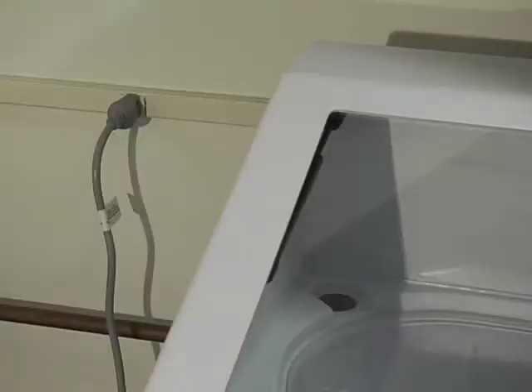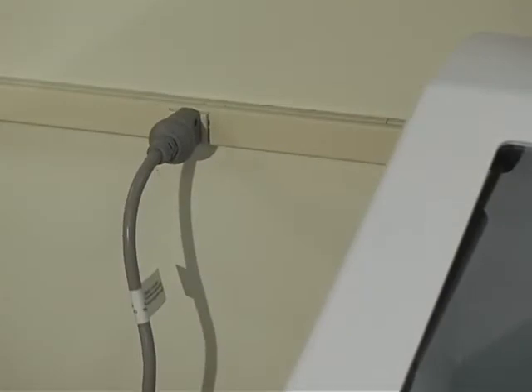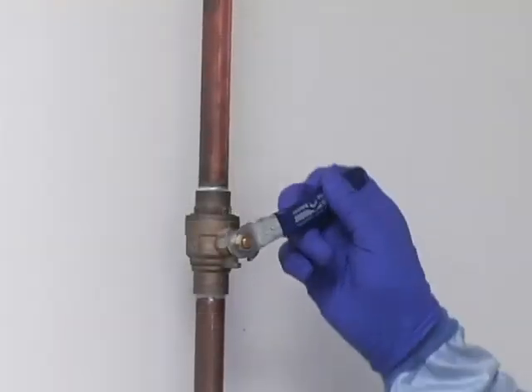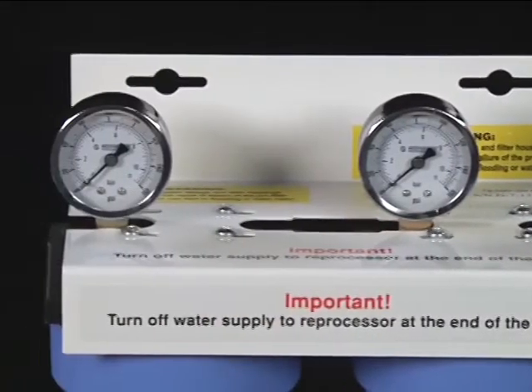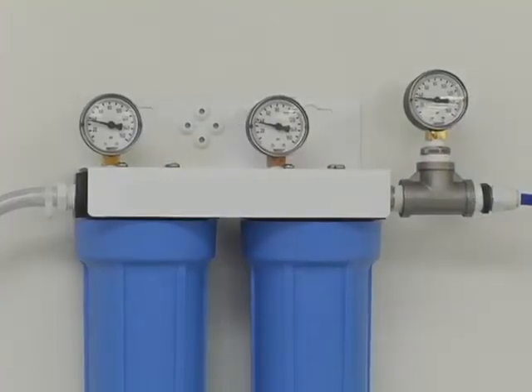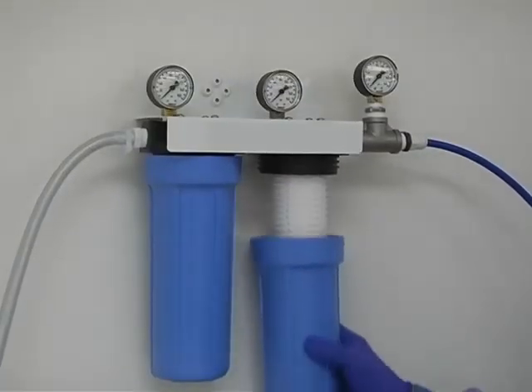At the start of the day, check to ensure that the DSD-201 unit is plugged in. Check the control panel lights and screen for messages. If none appear, continue. Make sure the incoming water line is in the open position. The unit will not operate without water pressure. Check the external pre-filters and inspect the gauges for noticeable water pressure drops, replacing the appropriate filter as necessary to maintain 40 PSI.